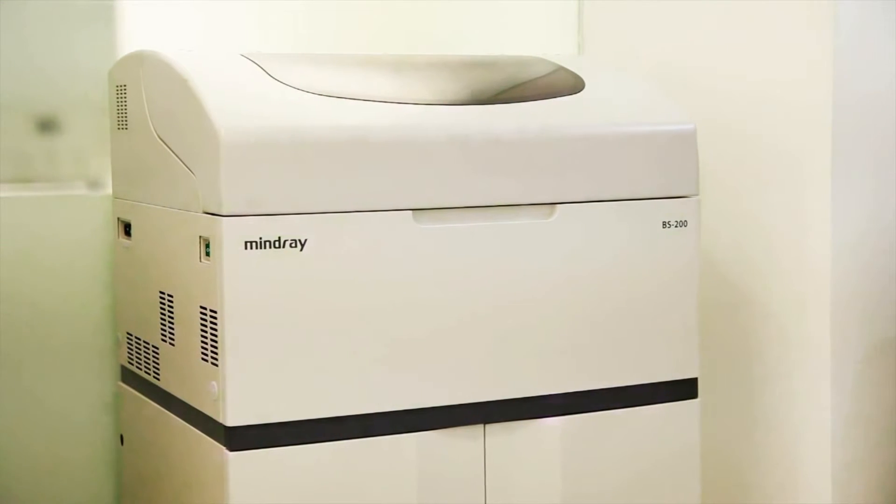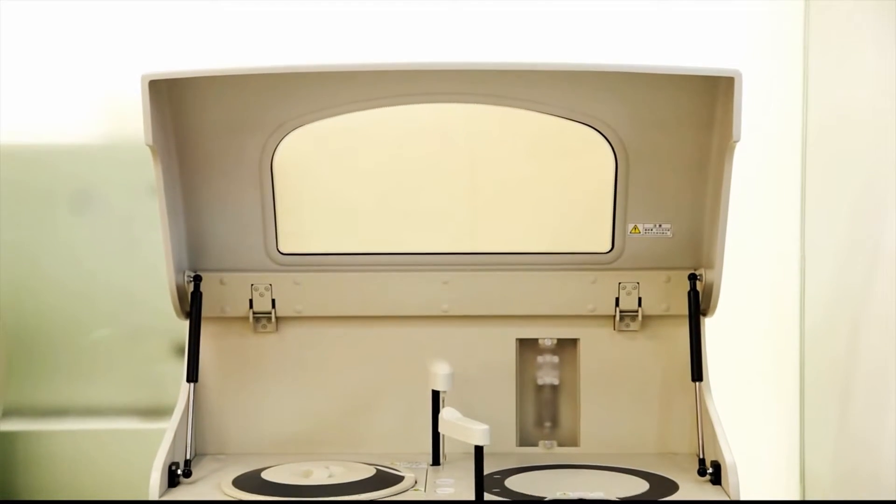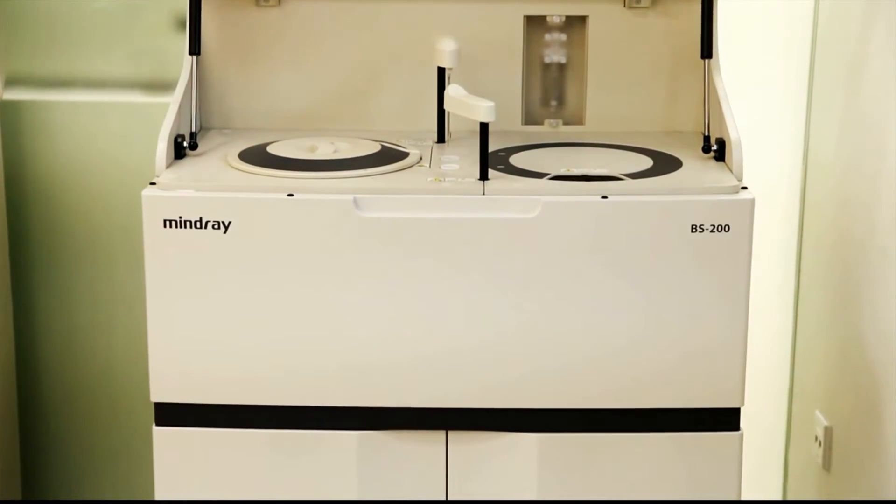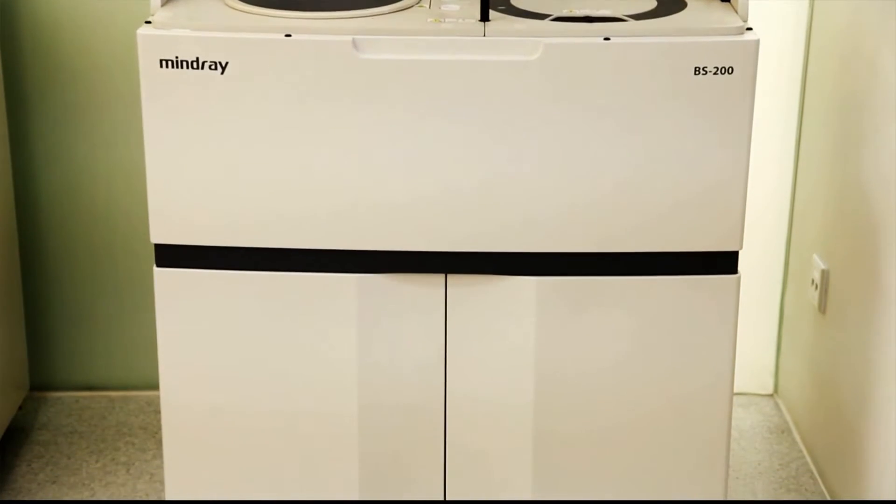At Mindray, our R&D team works endlessly on analyzer improvements while keeping your daily challenges in mind. Our innovative analyzer seeks to satisfy your needs in a highly regulated and demanding clinical environment.